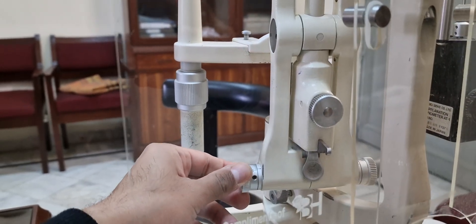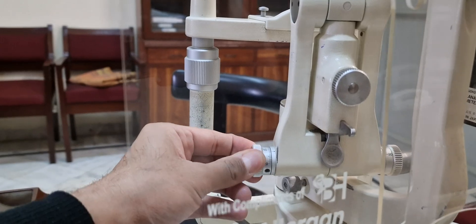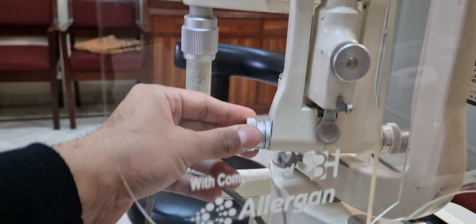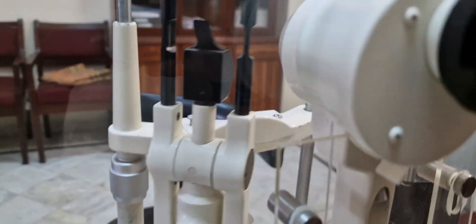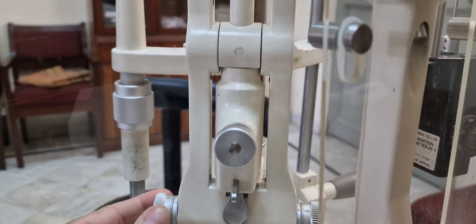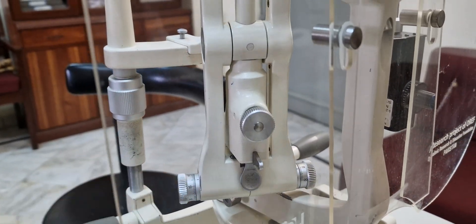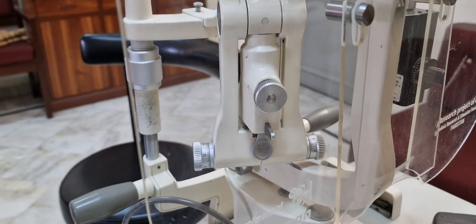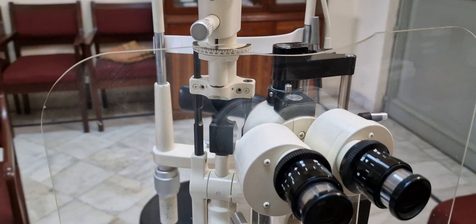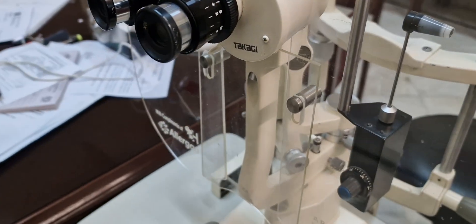Coming down, we can see there is a movable arm present with a dial. This is used to adjust the width of the slit. You can adjust the width as well as the height of the slit. By moving this arm upward, we can keep this rotatable arm at an angle, so we can see the corneal cross-sectional tissue by illuminating the light through it. These are the markings that are present.